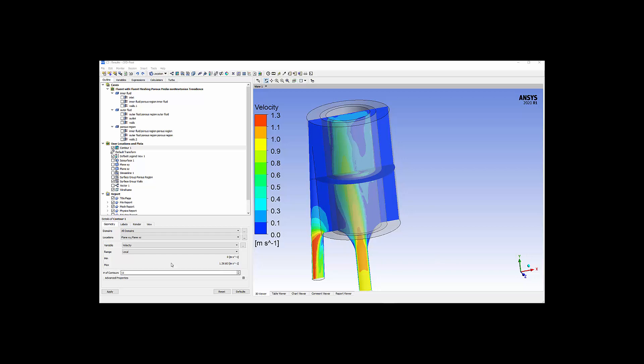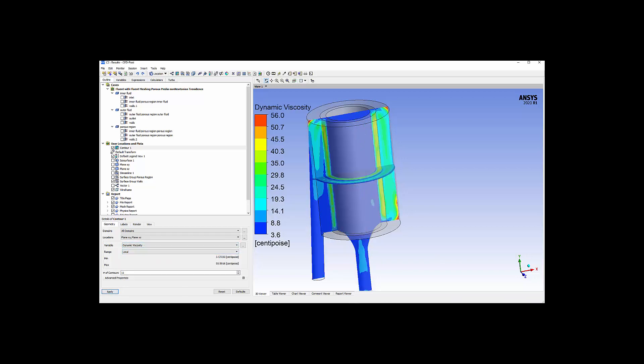Now I'd like to switch to dynamic viscosity. This helps us to visualize low flow, low shear regions which correspond to high viscosity regions. These regions are occurring within the porous region, as expected, but also in the outer region. The low flow, low shear regions can be significantly reduced by tapering the outer case to have less fluid volume near the top, then increasing as we move downward towards the outlet. The goal would be to have more constant blood velocity throughout the outer region.